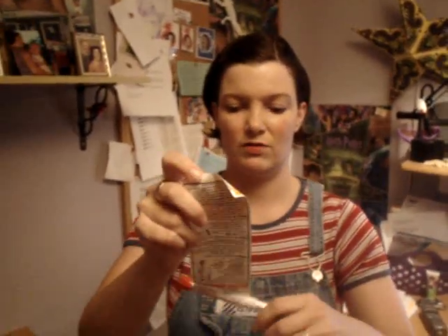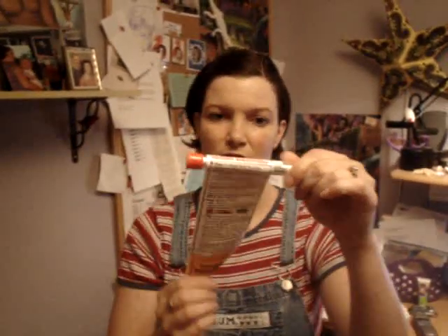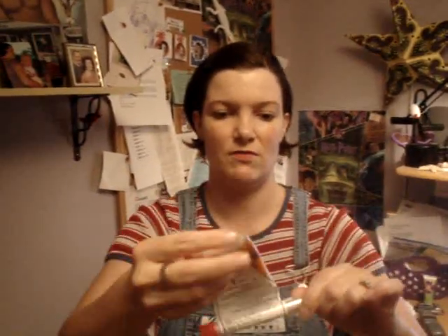Open it up. It's got a long sheet of directions that's attached to it. But if and when you receive your Twinject, you can feel free to avail yourself of those instructions. For now I'll give you a quick demonstration of how to use it — though getting the sticker stuck to itself is important.